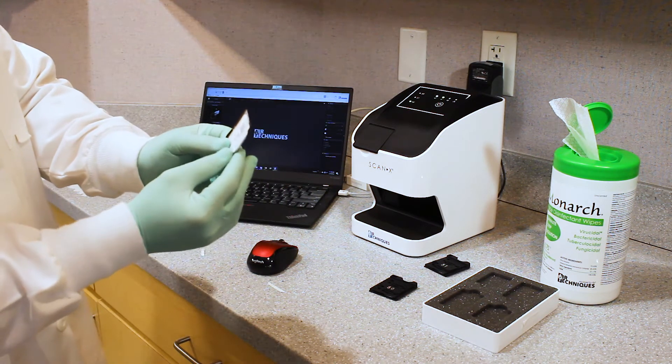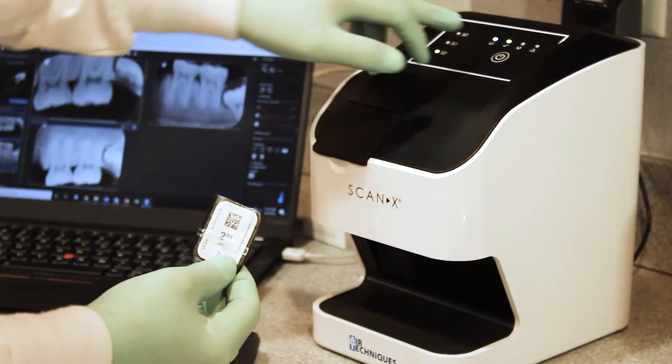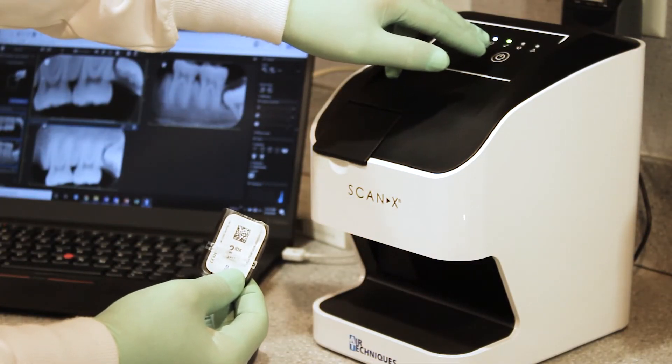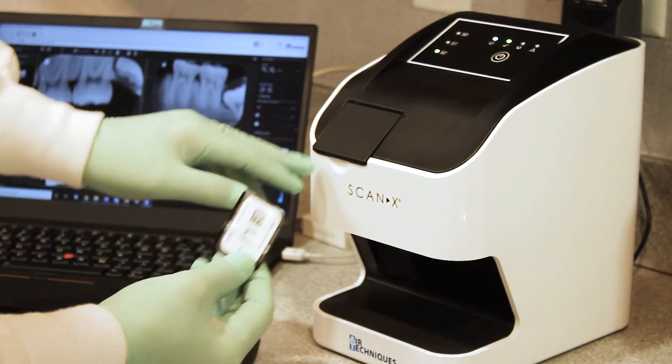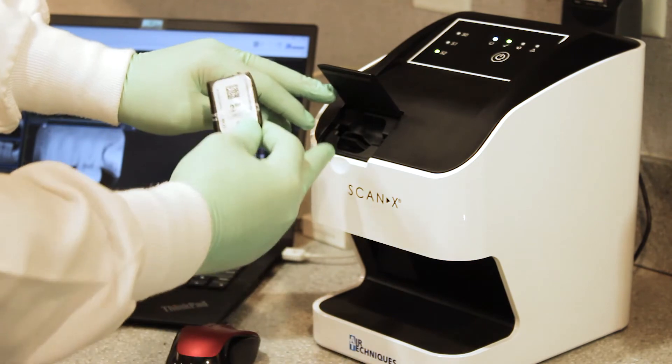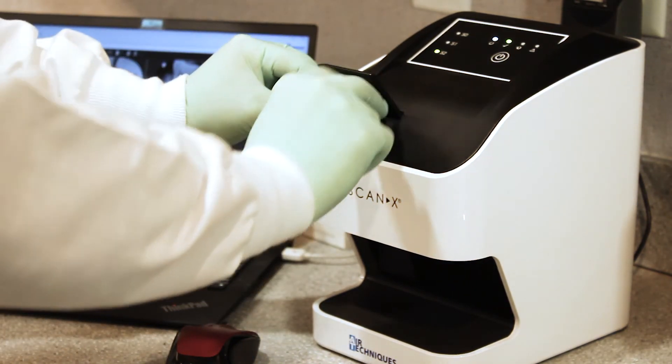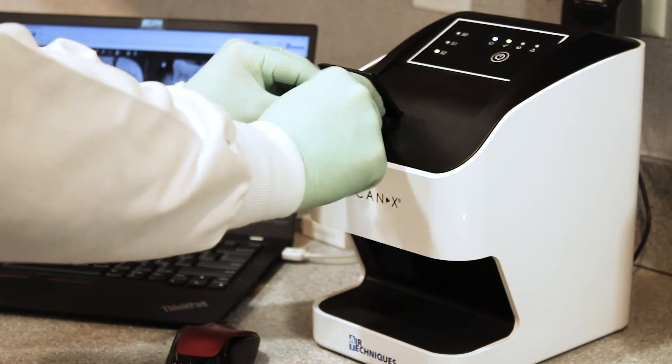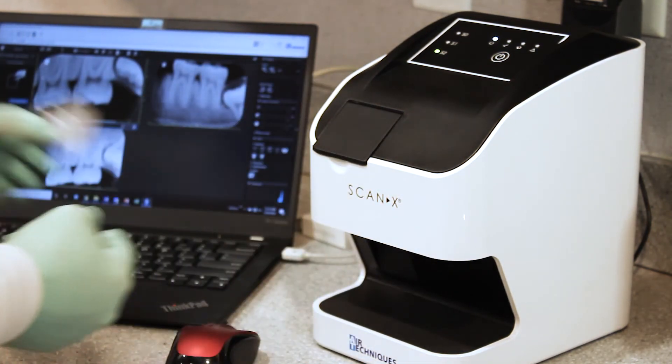Still being used in normal office daylighting conditions. So we have our ScanX activated and I can tell by the status indicator on the machine and also on screen over here. I will open the door. That's my size two cartridge. I will push the plate in. Barrier envelope gets discarded.